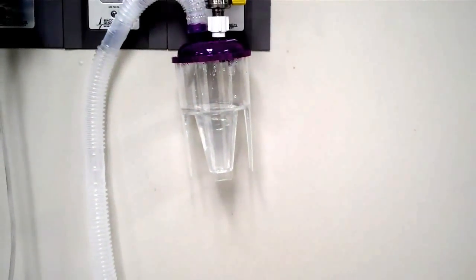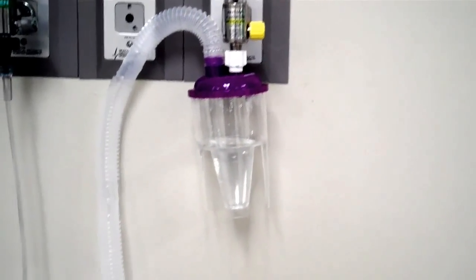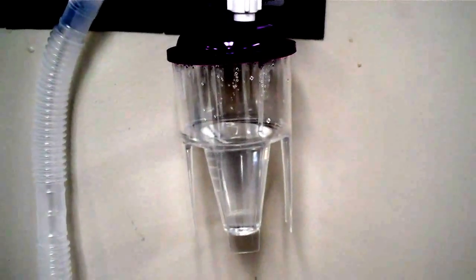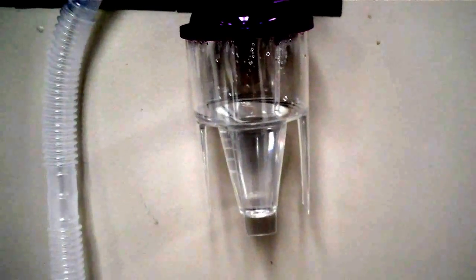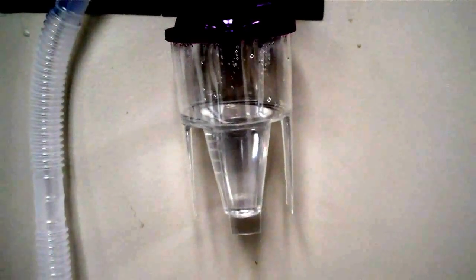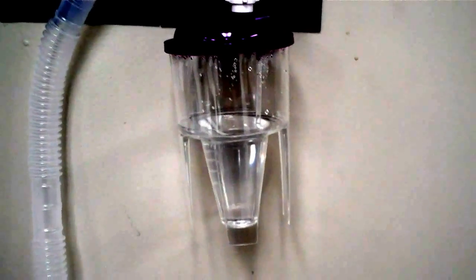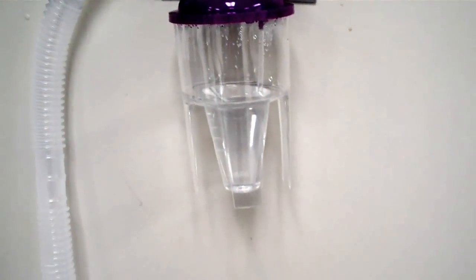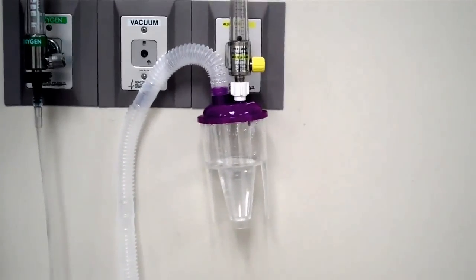If you notice that it was starting at 150 milliliters inside the large heart nebulizer and you came back one hour later and there was only 140 left, then you know that your nebulizer only nebulized 10 milliliters for that hour and that your patient is not receiving the amount of medication that they need. So you would have to increase the output, which would mean that you probably need to increase your flow rate.